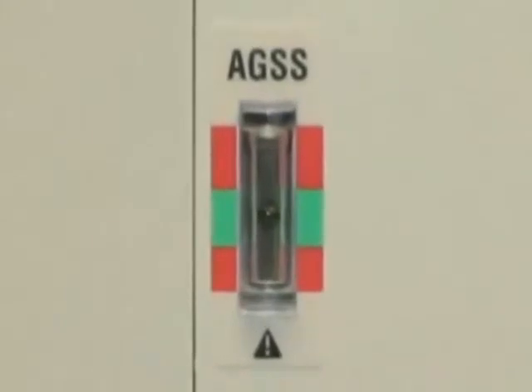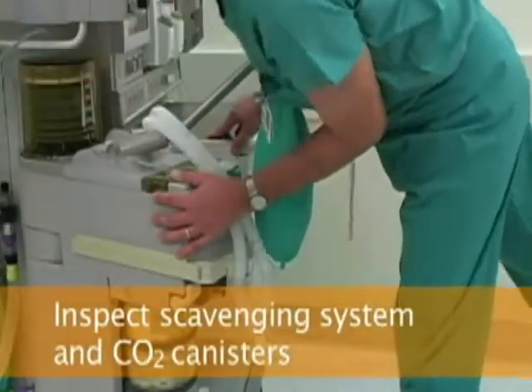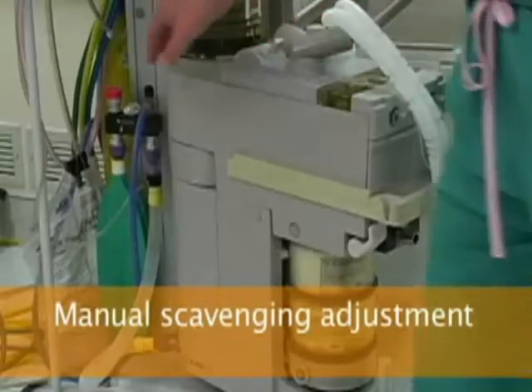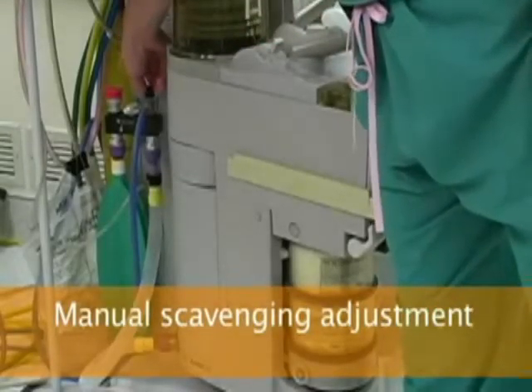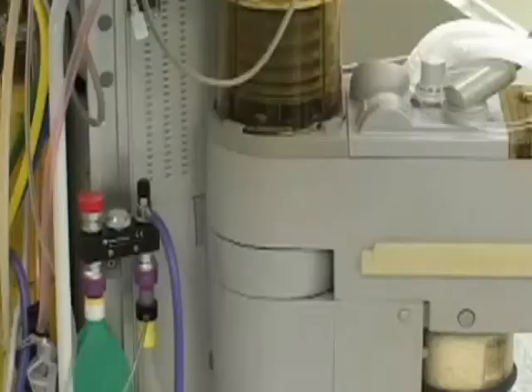Check that the scavenge function indicator flow tube is in the green range and that the carbon dioxide absorbent is ready and seated properly. In the manually controlled active-passive scavenging system, the black needle valve should be opened by approximately 1 1/2 turns, which should be sufficient to scavenge 10 to 15 liters per minute of fresh gas flow without causing the scavenging reservoir bag to overfill.